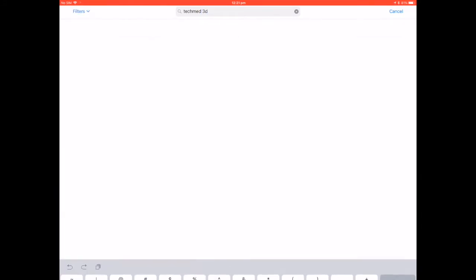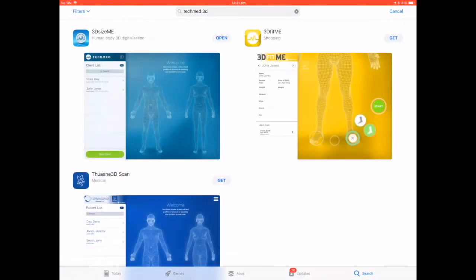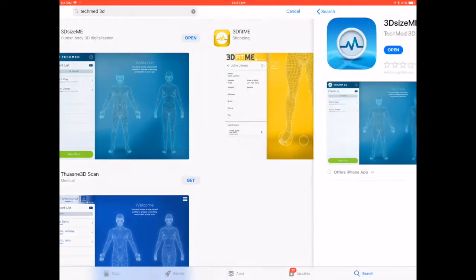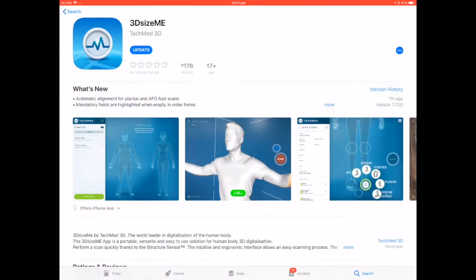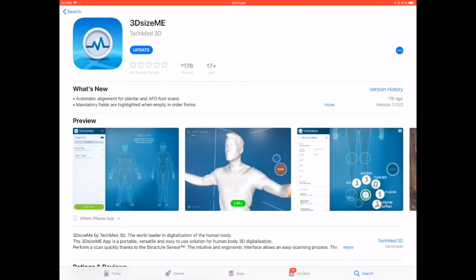Select this option and the 3D Size Me app. On the top left is the app that you've all been using on your iPads. Now some of your iPads will have automatically downloaded the update already, but if not, select Update.